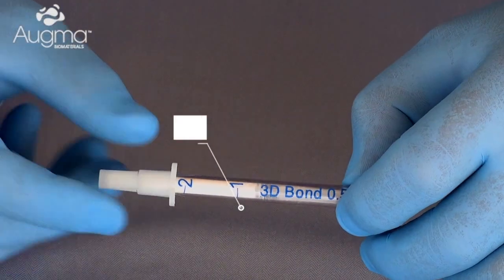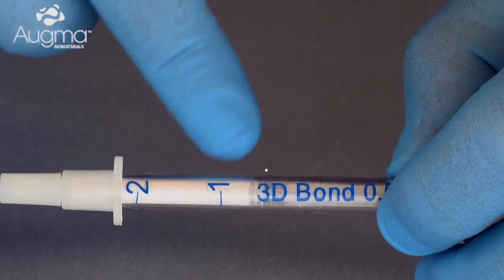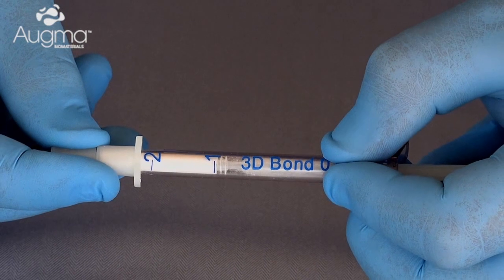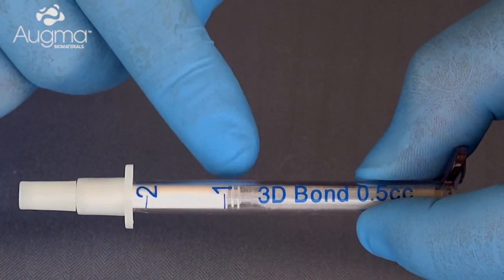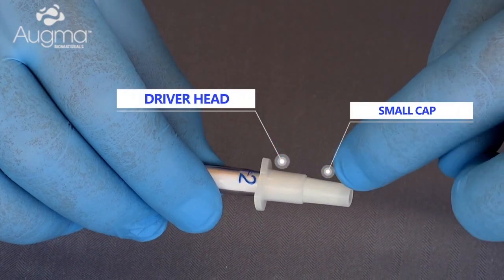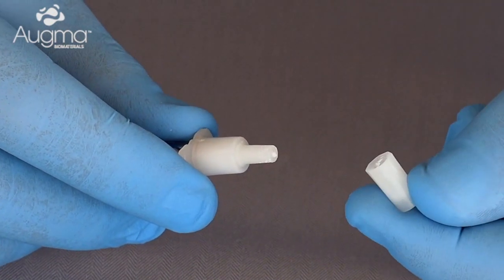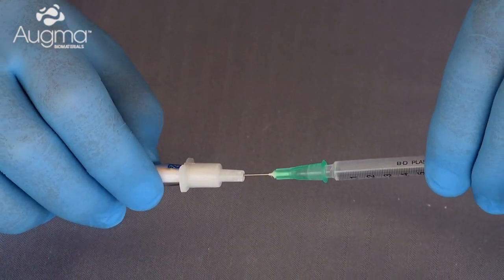Now we take the 3D Bond driver in hand. As you can see, it has line marks on it and a piston. We advance the piston until it reaches line number one. The 3D Bond driver also contains a driver head and a small cap. We remove the small cap by twisting and pulling it off.